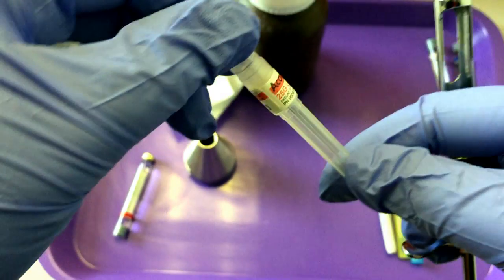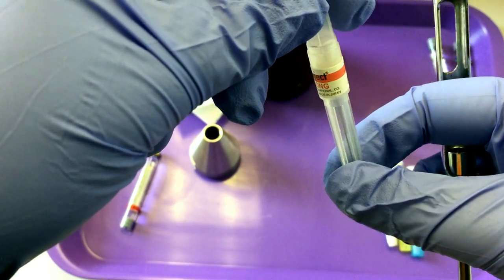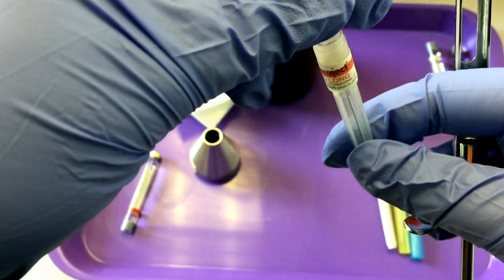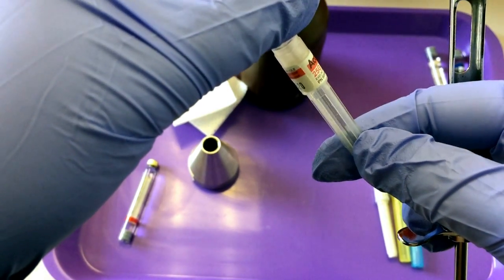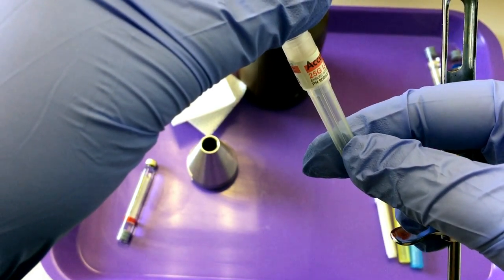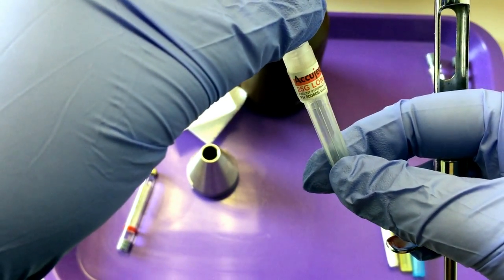When you're looking at your needles, needles are also labeled. They have an expiration date. They come in different lengths and different gauges. Gauges refer to the thickness or the diameter of the lumen.